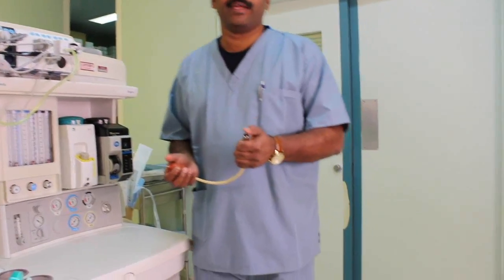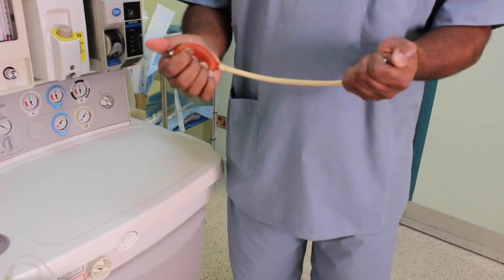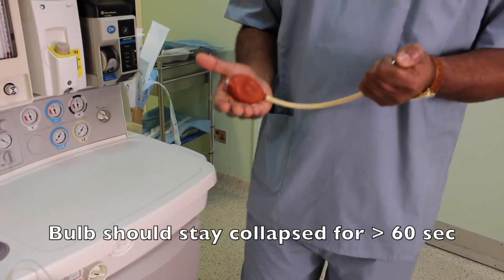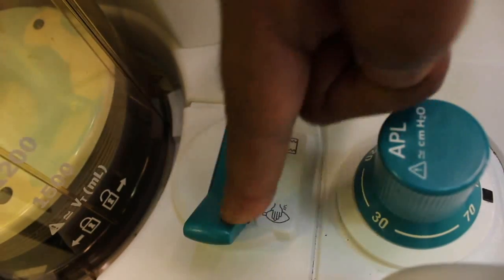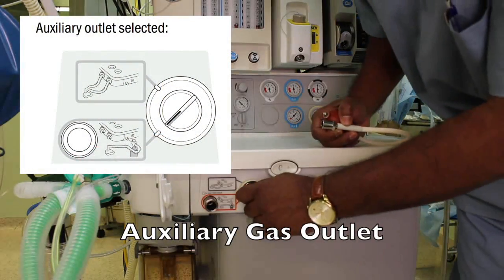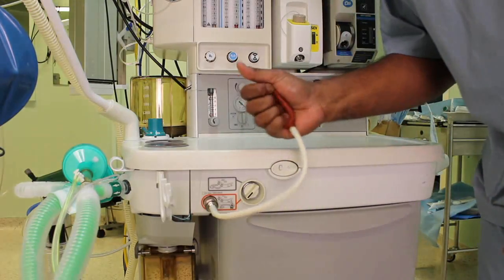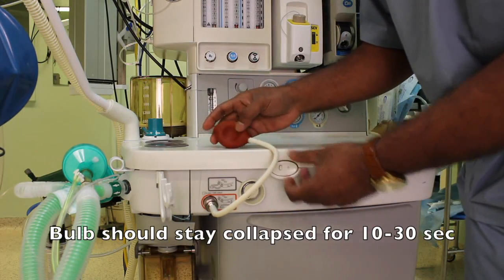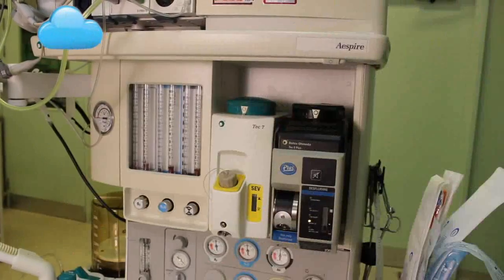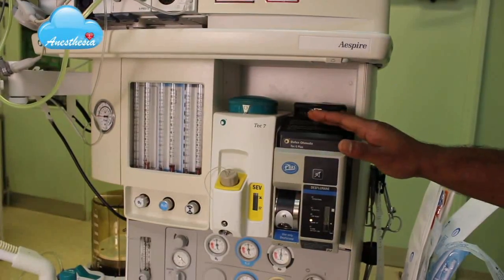First, make a good finger seal at the inlet and repeatedly squeeze the bulb so that it is collapsed. This bulb should stay collapsed for at least 60 seconds. Change the bag selector switch to bag mode, change the circuit selector to auxiliary circuit, and then attach the leak test device. Squeeze repeatedly so that the bulb is collapsed and make sure it stays collapsed for at least 10 seconds. You must repeat the low pressure leak test after opening each vaporizer one at a time.